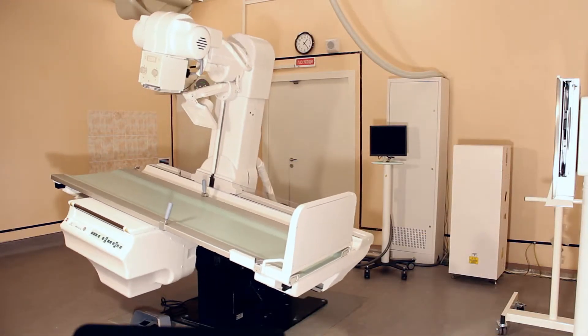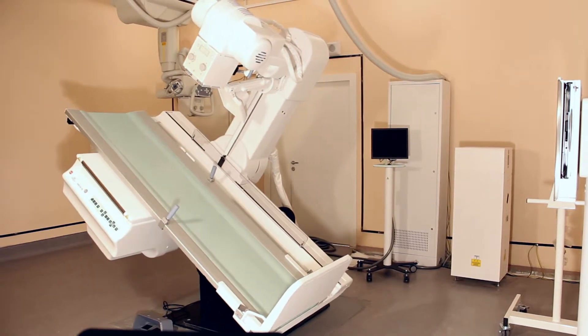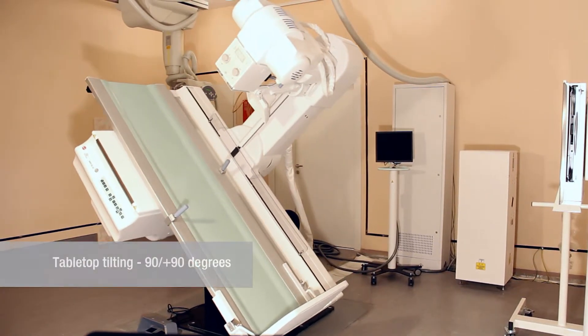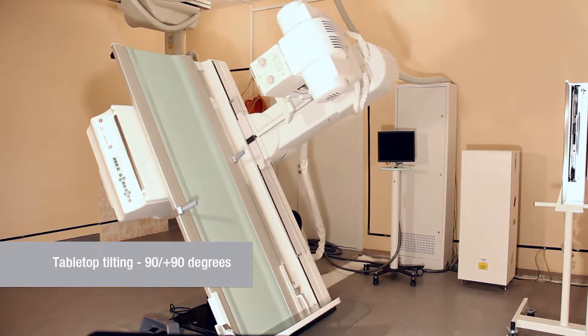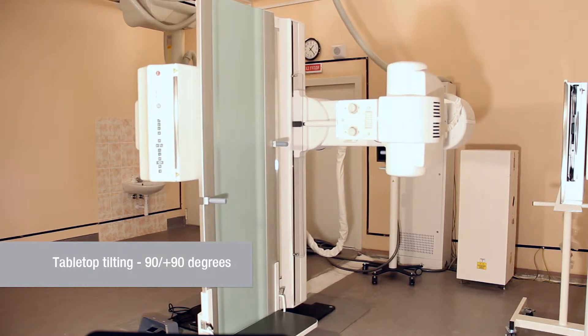Tabletop tilting capacity ranging between plus 90 minus 90 degrees or plus 90 minus 30 degrees allows carrying out any type of X-ray examinations without restrictions.